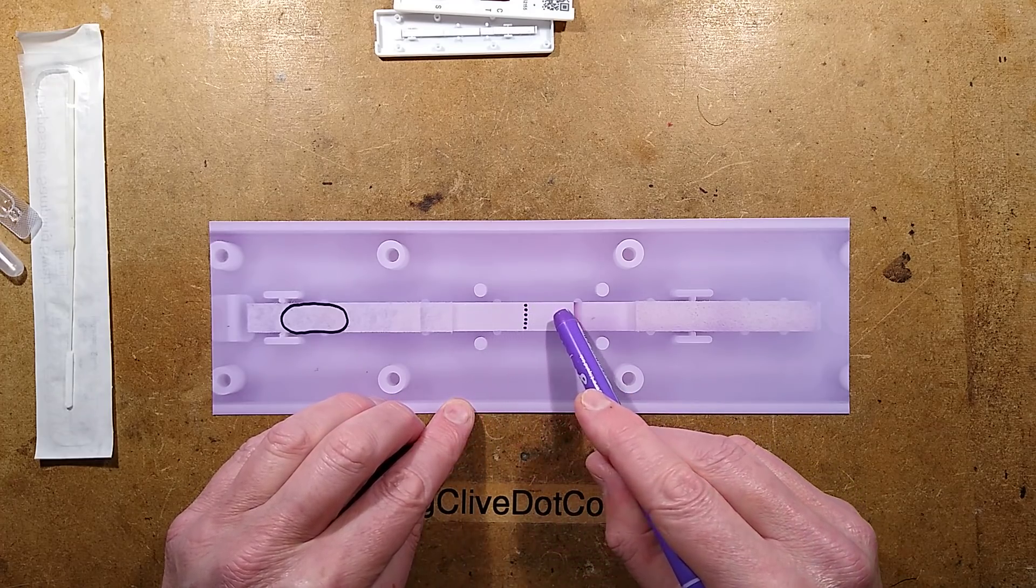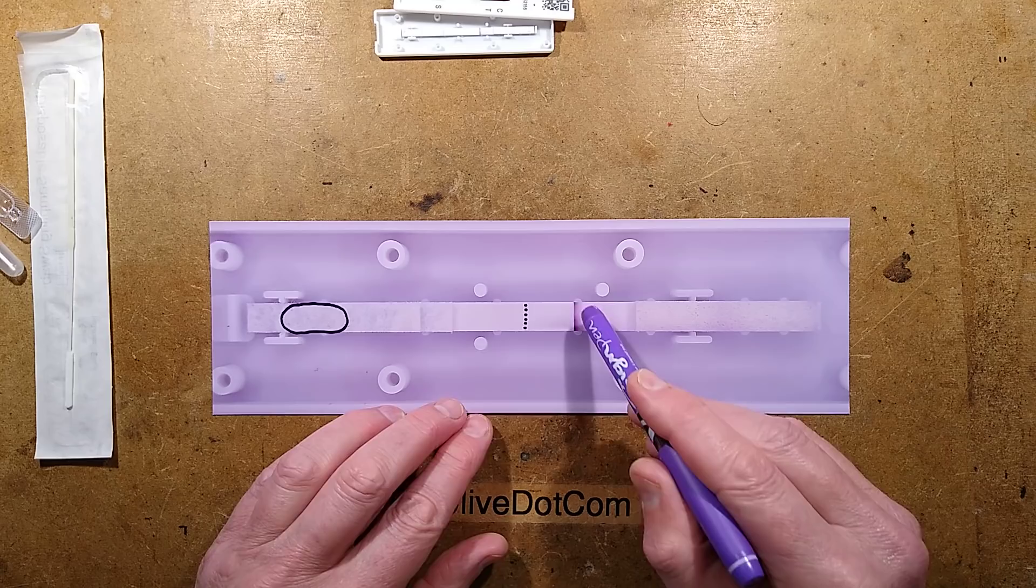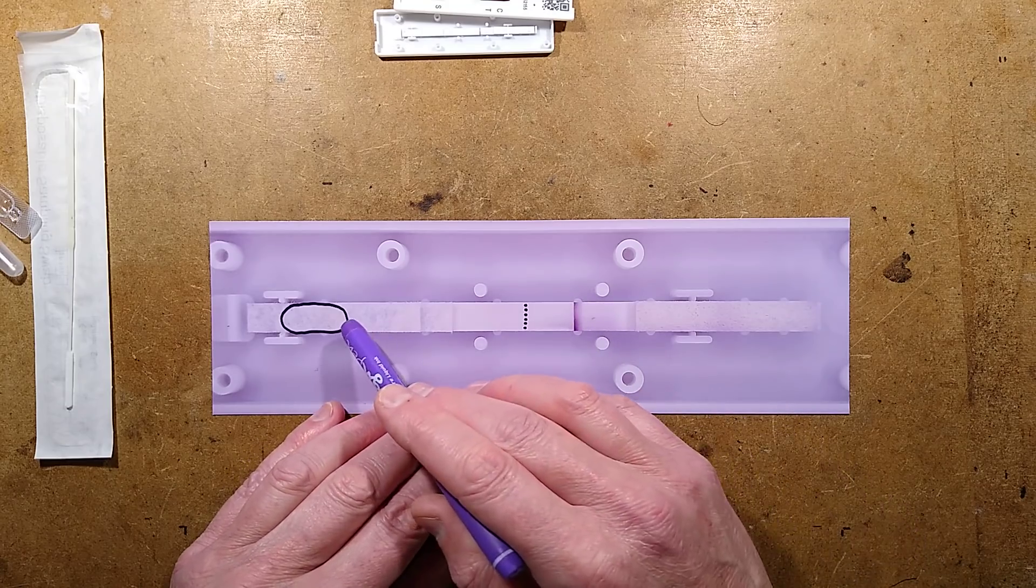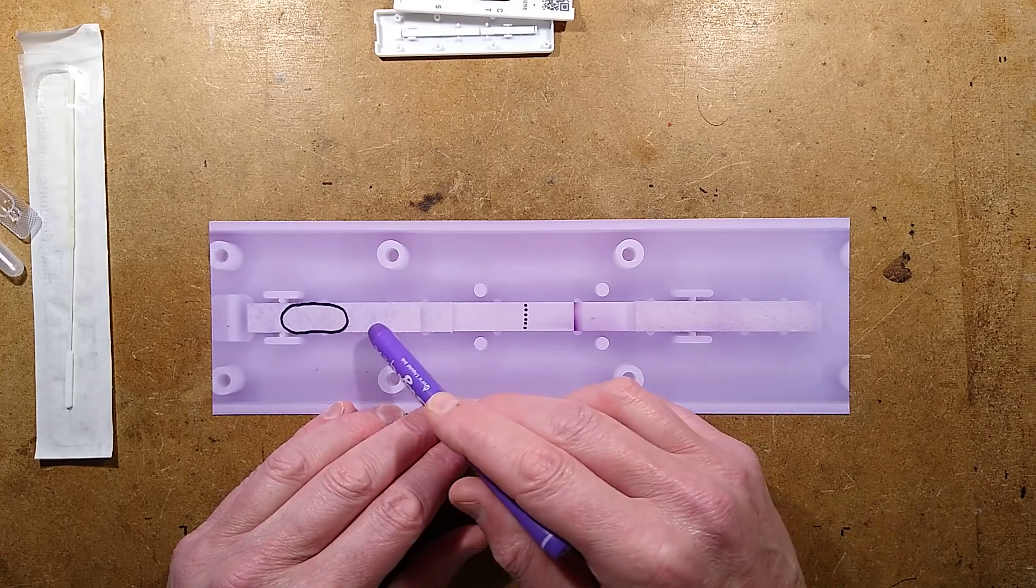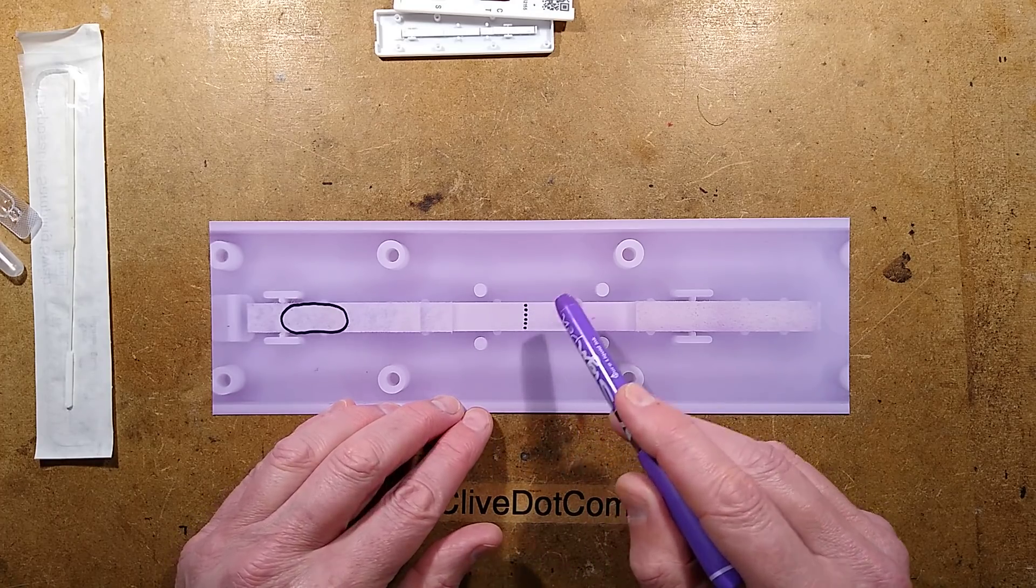It then continues up and there's another set of keys that will just generically latch onto everything else as it passes. And the whole point of that is to show that the whole process has happened properly, that the chemicals were right and that the whole process did go through this zone to actually display the test.